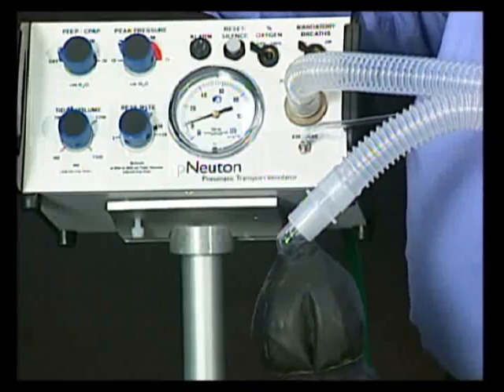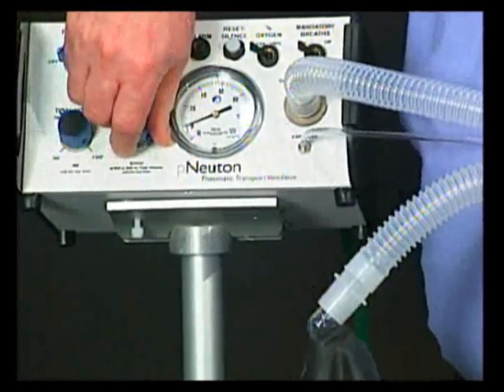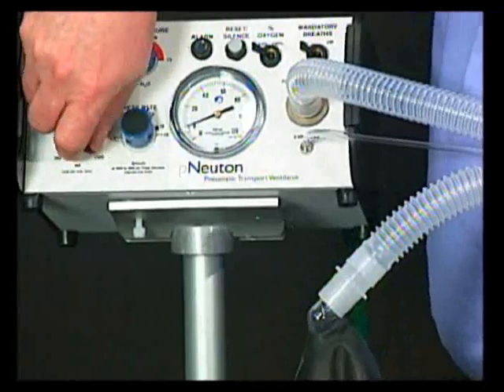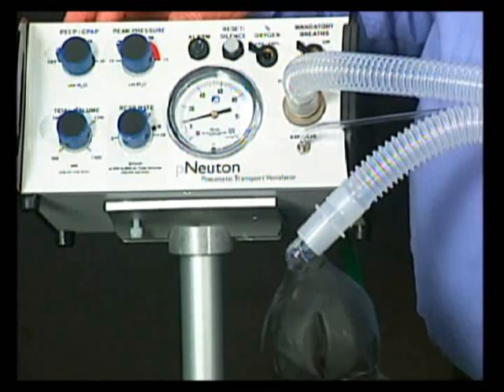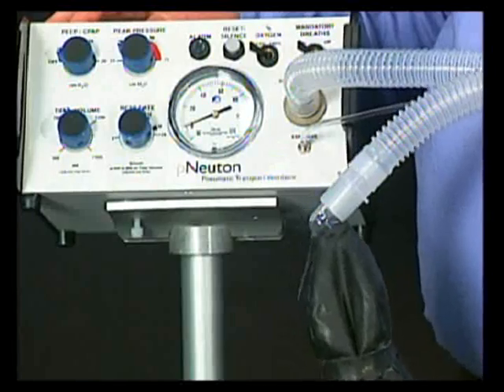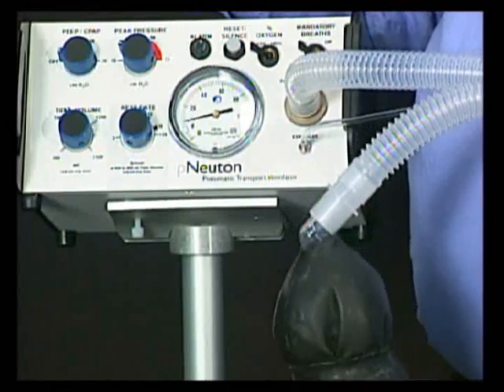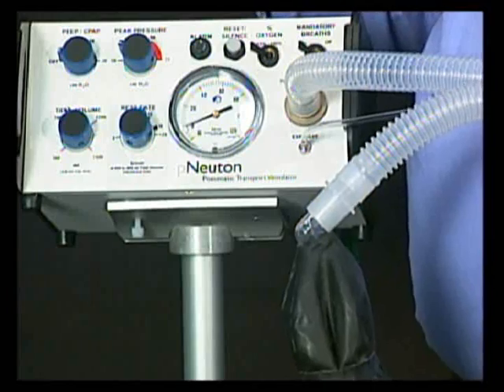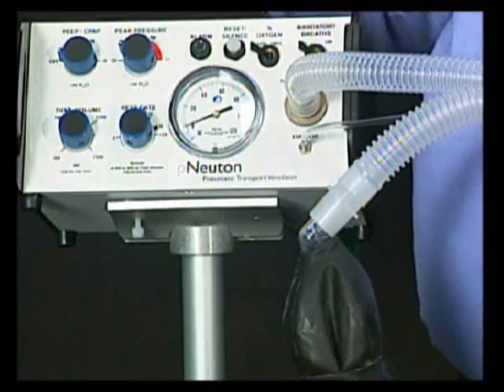Let's discuss patient setup with the tidal volume and respiratory rate controls. Set the desired patient tidal volume and respiratory rate like so. With the preset peak flow, when you change the tidal volume, your inspiratory time changes, as you can see here. Changing the respiratory rate changes expiratory time, so it is recommended that the clinician always monitor the mandatory respiratory rate. For further information on the interaction of tidal volume and respiratory rate, refer to your user manual. The peak pressure control should be set above the delivered pressure at a desired setting to assure patient safety. With the percent oxygen control set, the ventilator is ready for any critical care ventilator situation.